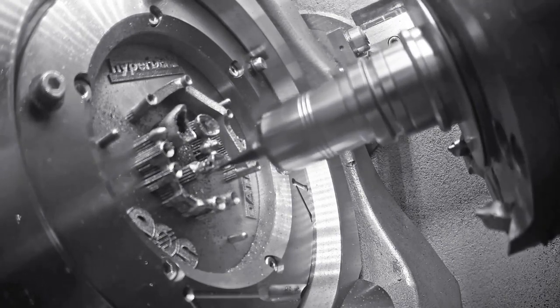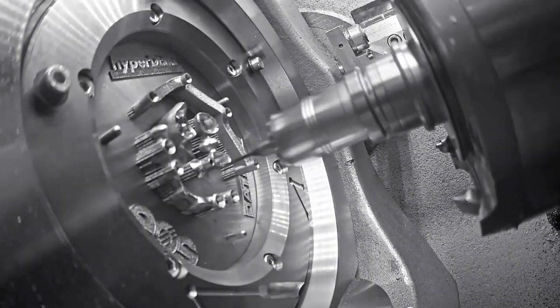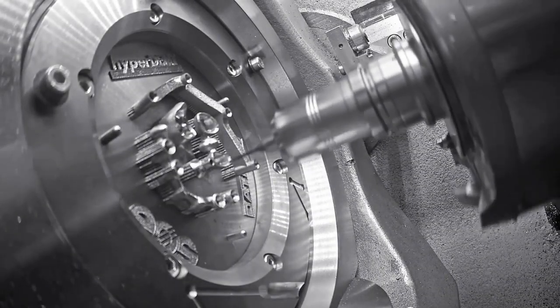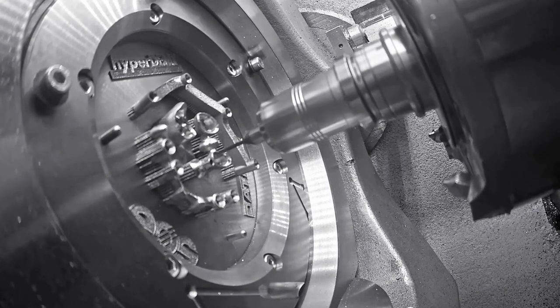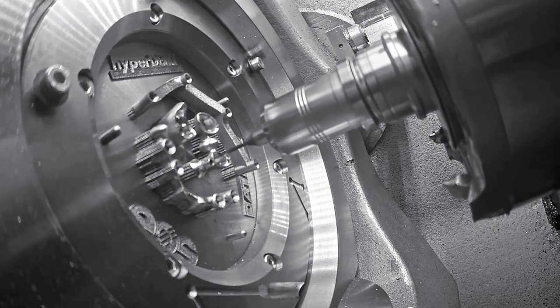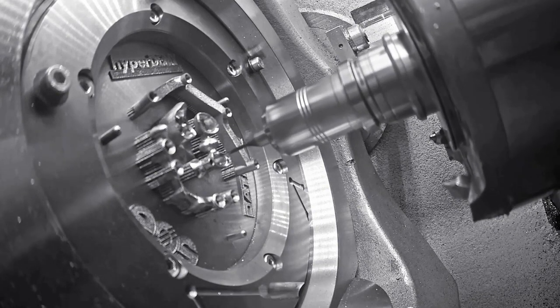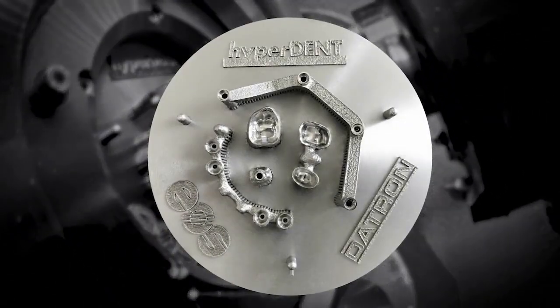Cost savings by using only one CAM to create accurate data for the SLM and milling processes. Minimized material investment is also a big benefit. Up to 70% less machining time by post-milling only selected areas where high accuracy is needed.